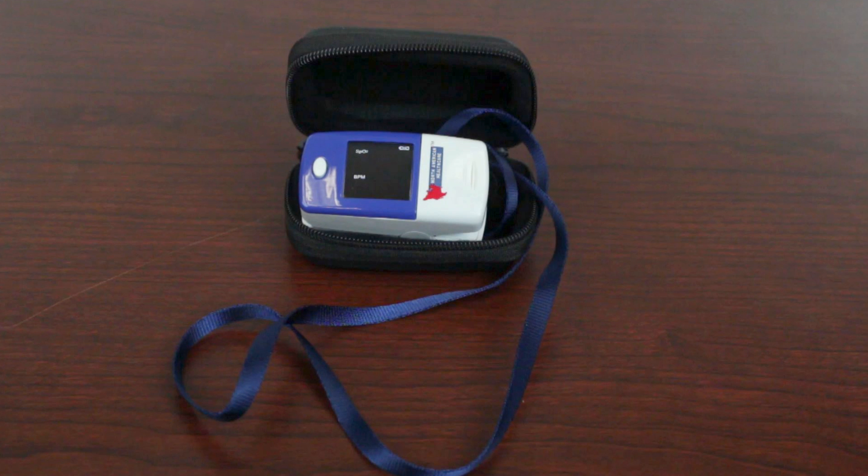It's not a toy, but it's a great way to monitor things. It doesn't replace proper diet or medical diagnostics, but it's a great way to find out if you have a problem. You don't just get the oxygen meter — you also get a lanyard so you can put it around your neck or wrist, and a great case with a belt loop, so there's no reason not to take this wherever you go.